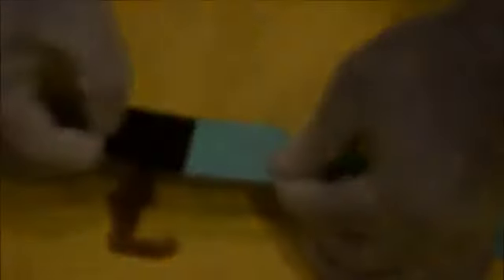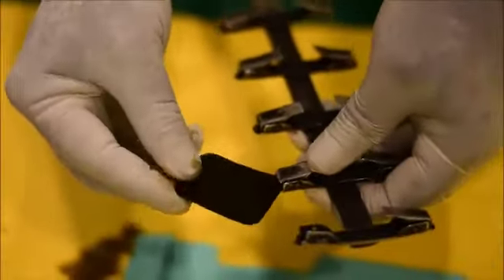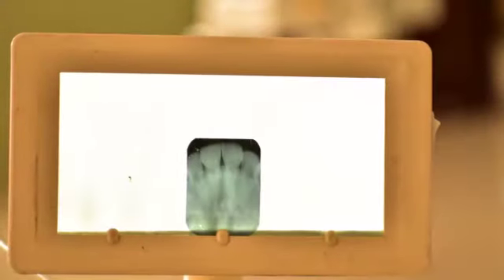The film is retrieved and the chemicals are discarded. The film is then rinsed with running water and dried. The final view of upper anteriors.